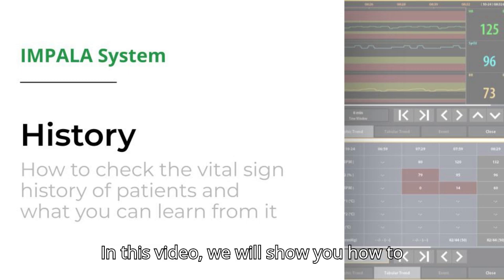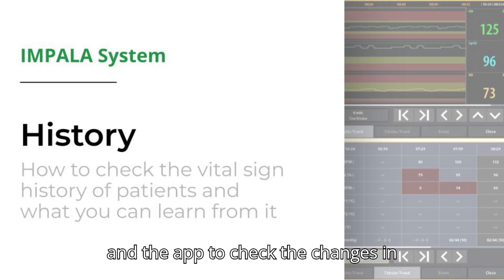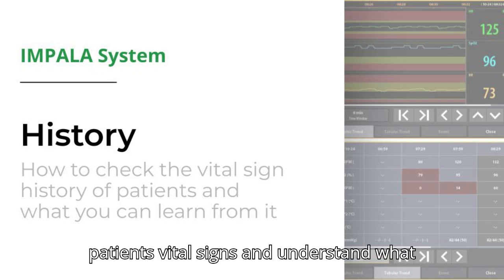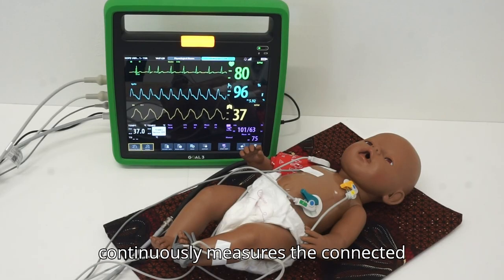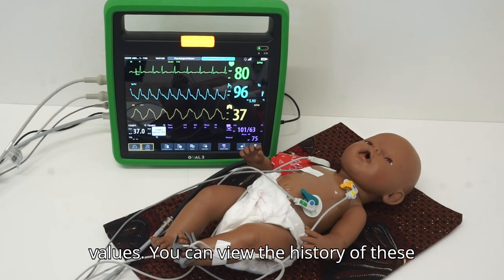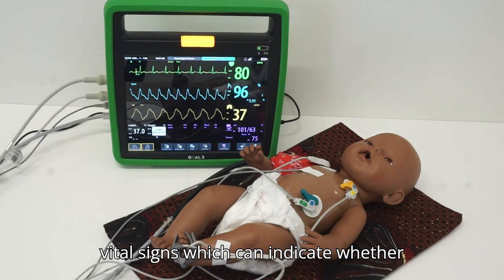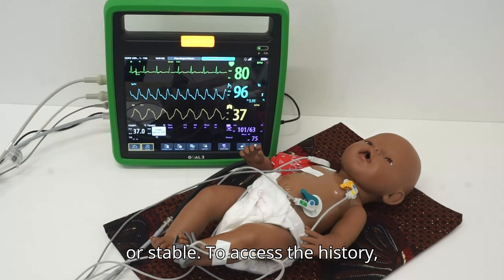In this video, we will show you how to use the history function on the monitor and the app to check the changes in patients' vital signs and understand what you can learn from them. The monitor continuously measures the connected patient's vital signs and stores these values. You can view the history of these vital signs, which can indicate whether the patient is improving, deteriorating, or stable.